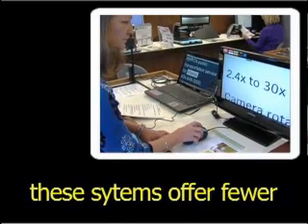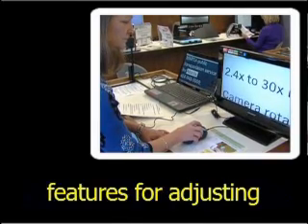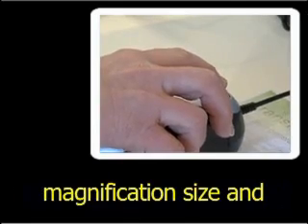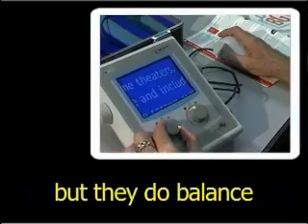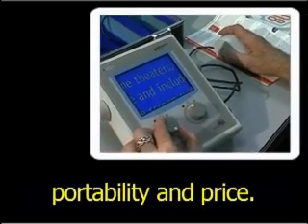Compared to their bigger cousins, these systems offer fewer features for adjusting magnification size and manipulating displayed images, but they do balance portability and price.